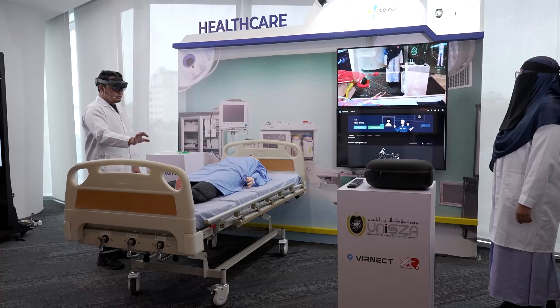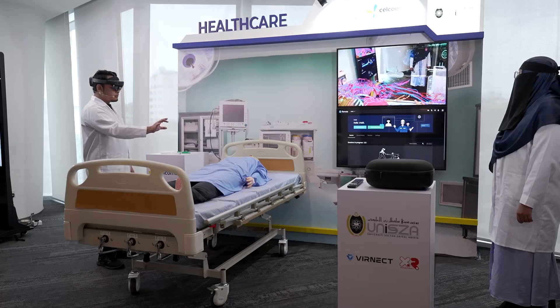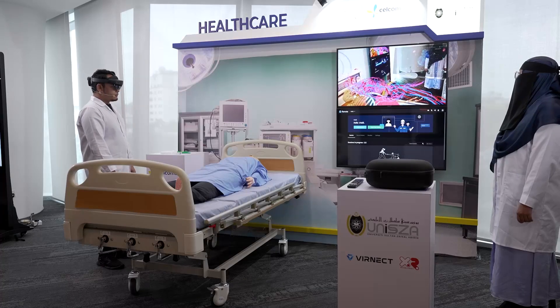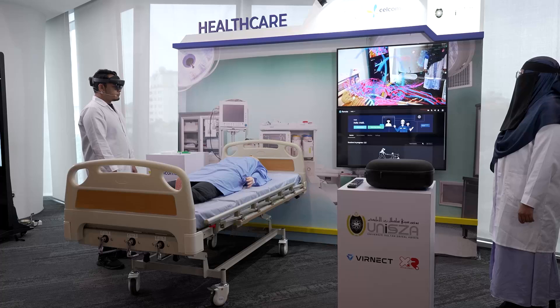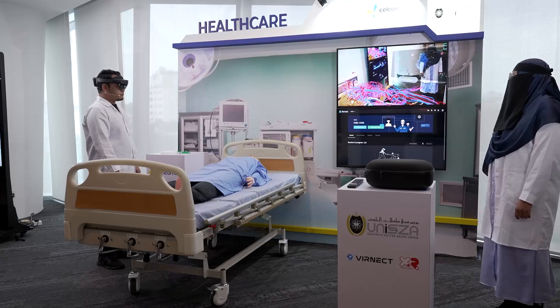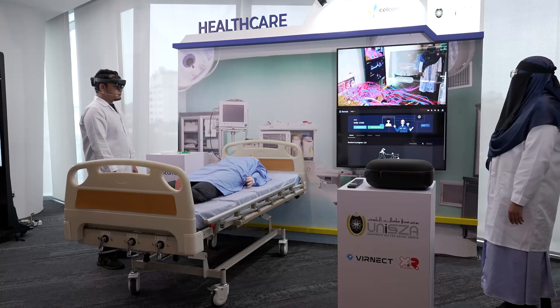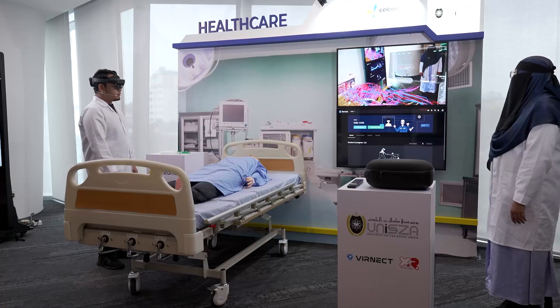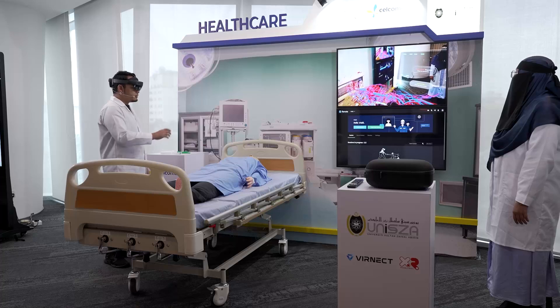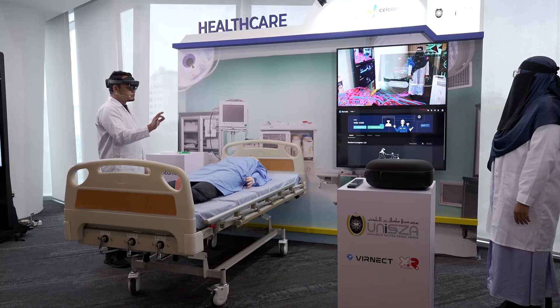Finally, we check the nerve system and diagnose it. The AI indicates we have an issue with the heart rate. We need to authorize the AI to help us proceed with the treatment.